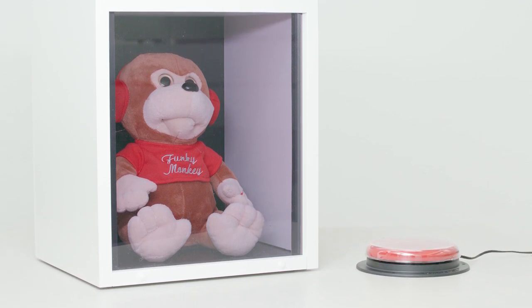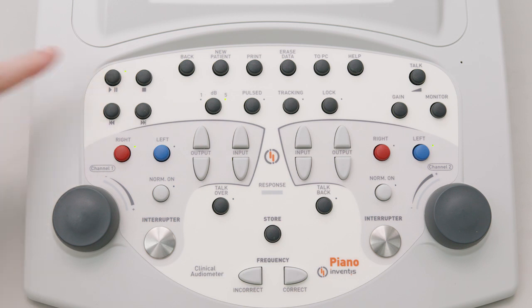The Piano features an integrated four-gigabyte flash memory for storing your speech material. Dedicated buttons allow you to access word lists with ease.